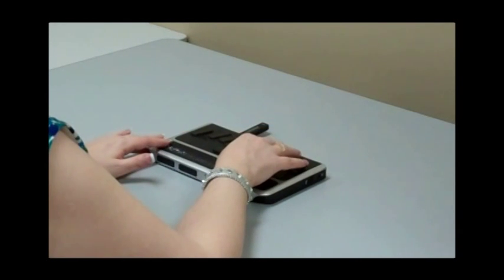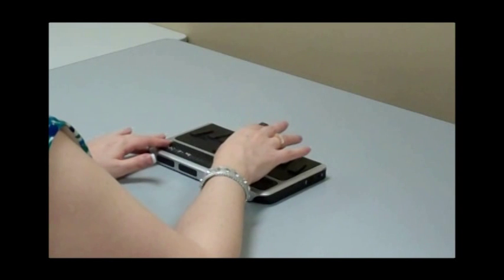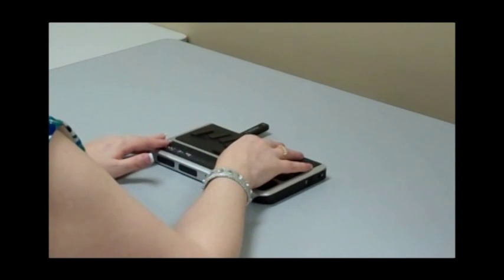Navigation. Navigation is if you have a GPS receiver hooked up to that. You can even use GPS capabilities if you are walking around in a strange place or a strange part of town and you need to know where you are and where you're going. You can use that. Book reader. Book reader is my favorite feature, actually, because I can read a book in Braille that I have scanned into the computer. I have a scanner, and I scan things into the computer and translate them into Braille, and then I can read a book with that.